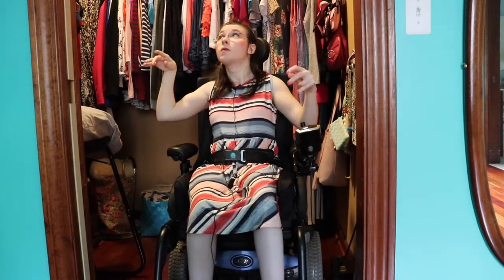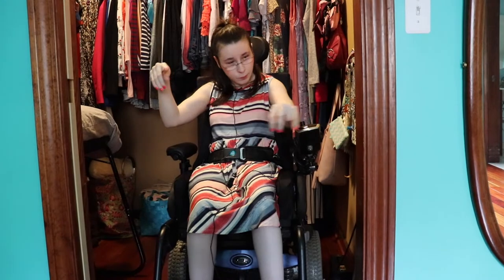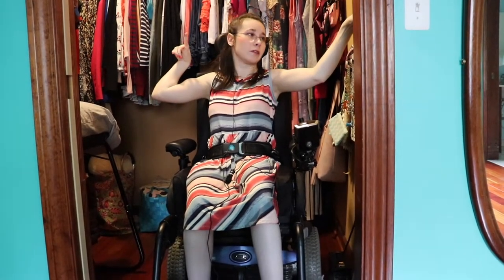This particular wheelchair — this is the first time we ever did this — because when you plug it in, let me grab the charger so I can show you guys.